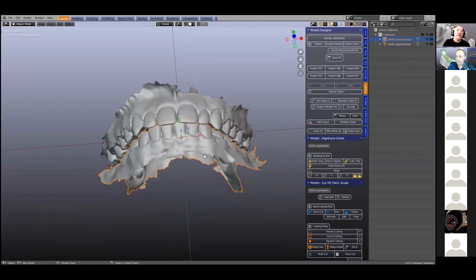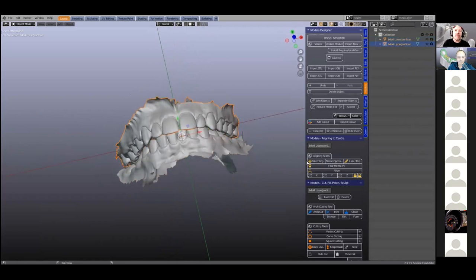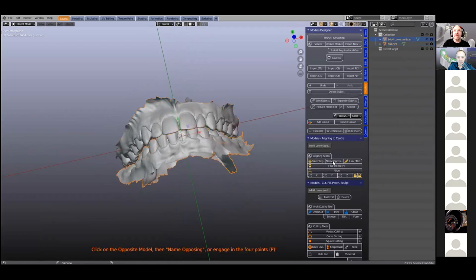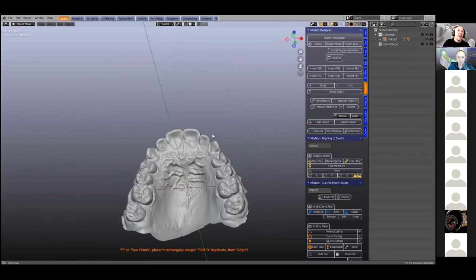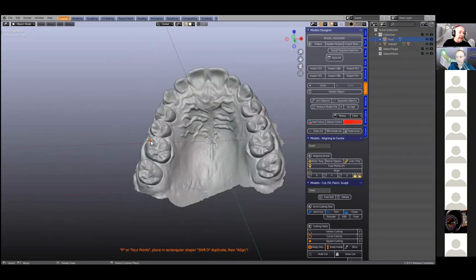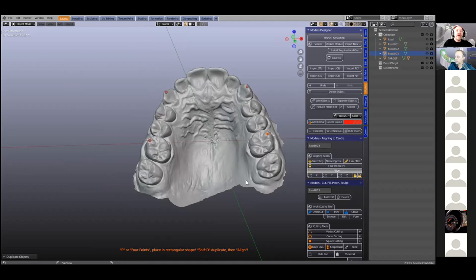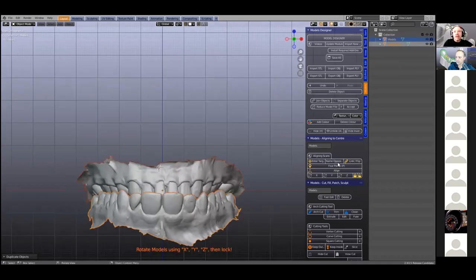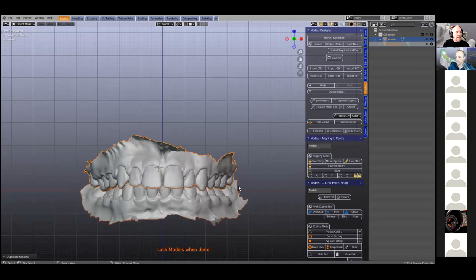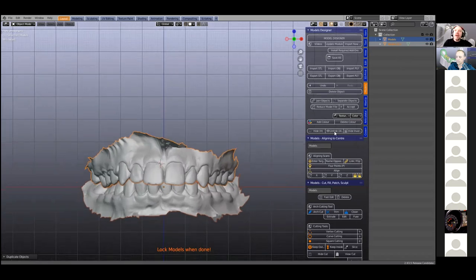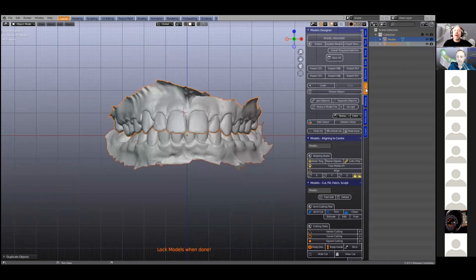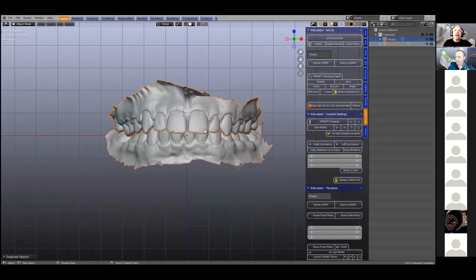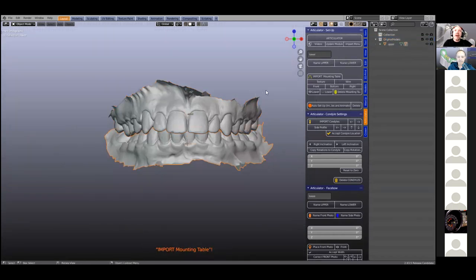To start off with, we're going to move this into the center of Blender. We're going to do this as per usual with the model designer. We're going to flip it and put it to the center. So P key — we should all be sort of familiar with this procedure. Align that, and then we're going to flip this over on the Y-axis like that. The next thing we're going to do is use the articulator and the wax up and the model designer for making a tooth library. We're going to then bring in the mounting plate in the articulator. I'm going to name this upper and name this lower. And we need to mount this.